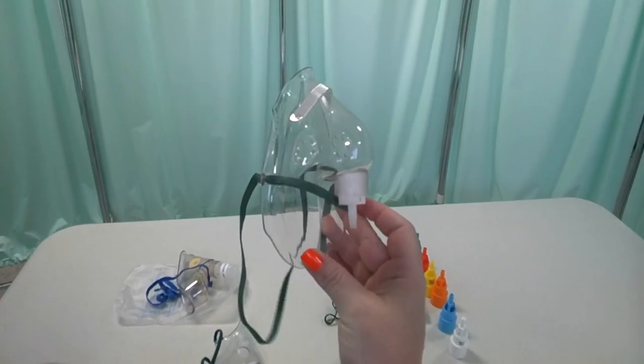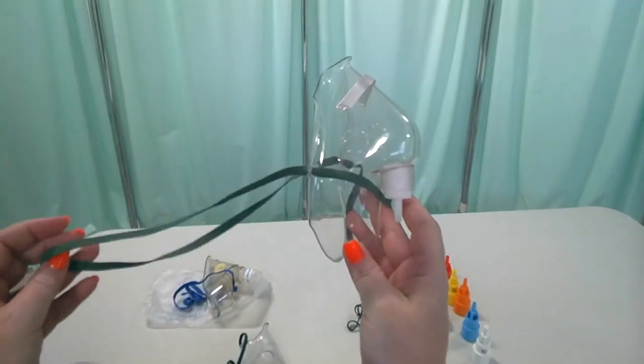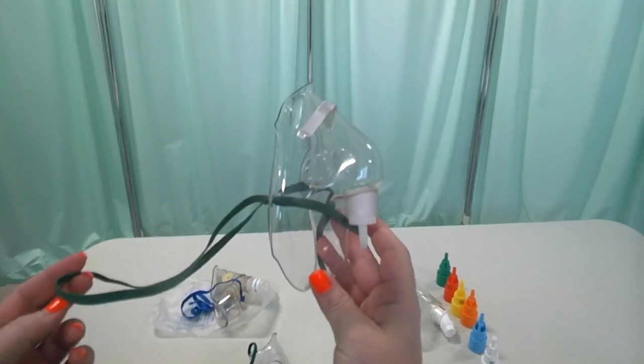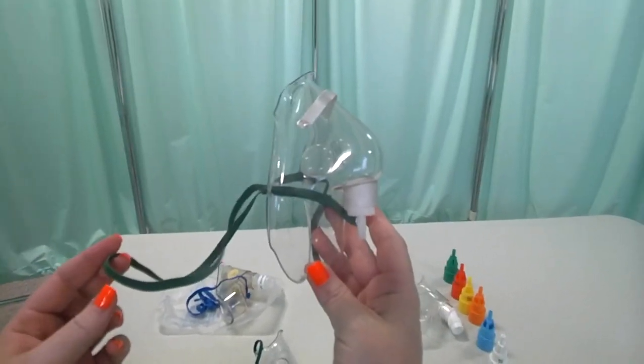The indications for using this mask is for people who are moderately hypoxic — that's an easy and simple way of explaining it.